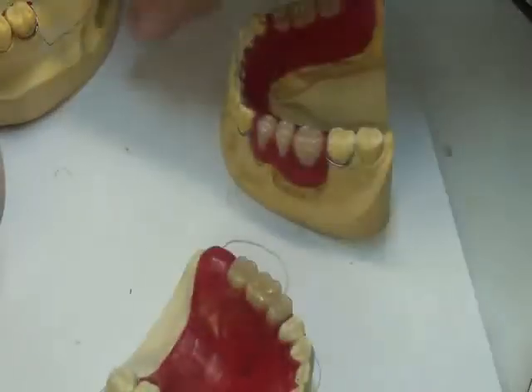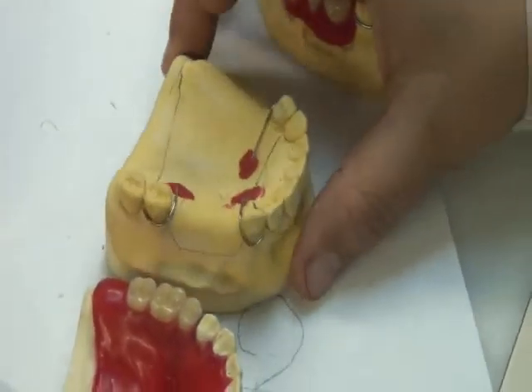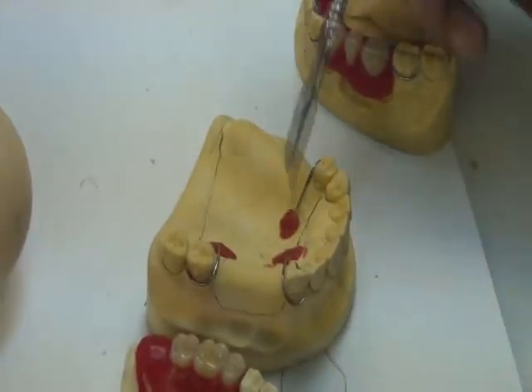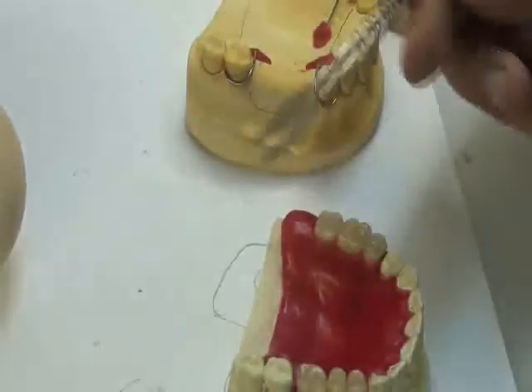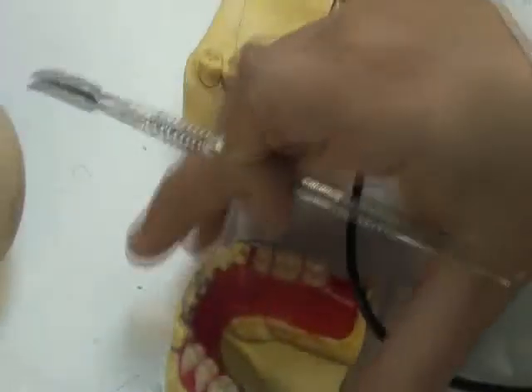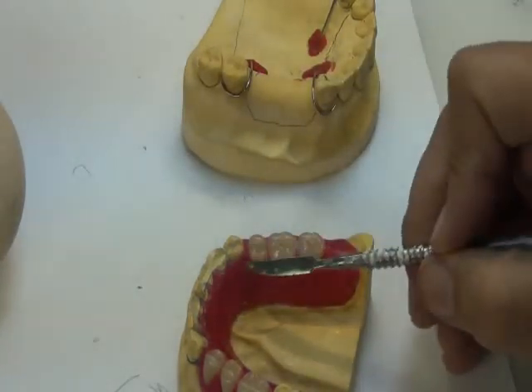Here we have the two options we told you about. Either I leave a clearance, but that clearance should be able to withstand forces, with 6 millimeter clearance, or I could do full coverage, where I cover the cingulum of the teeth, up to the cingulum of the teeth. Okay? For the lower, I should always extend to the anterior teeth, because this acrylic needs strength, and I could only get the strength from going in between the teeth.